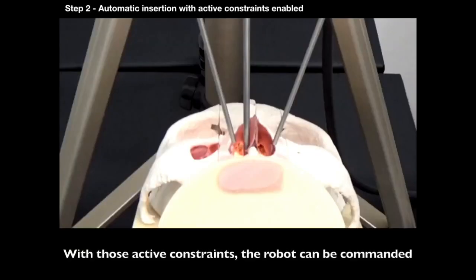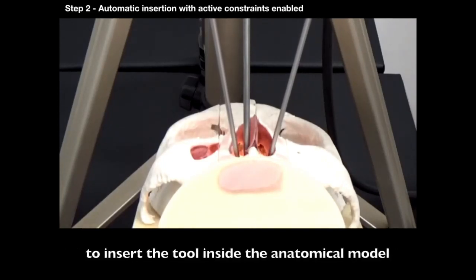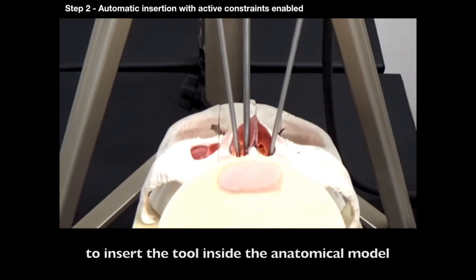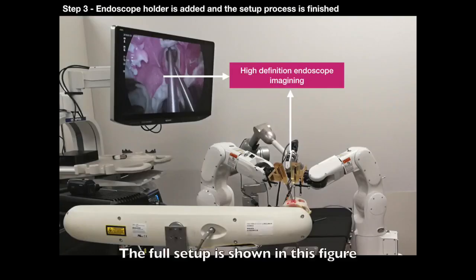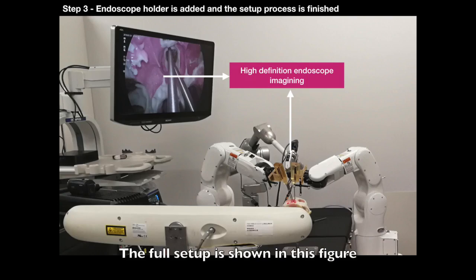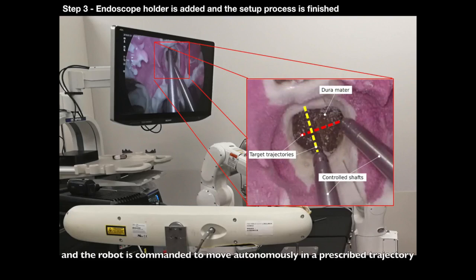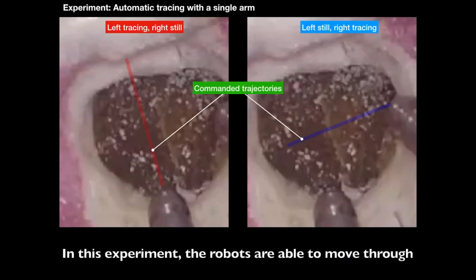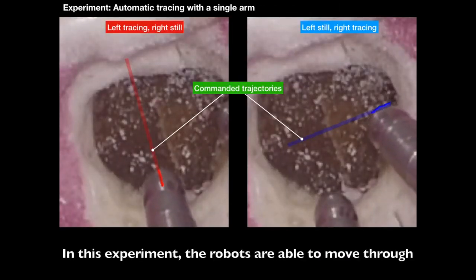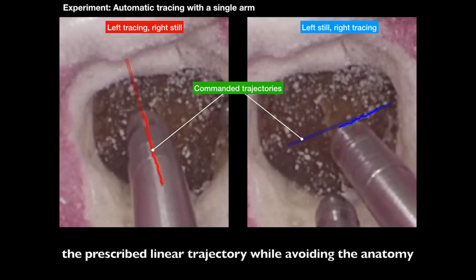Each tool has a finite cylinder constraint to avoid collisions. With those active constraints, the robot can be commanded to insert the tool inside the anatomical model. The full setup is shown in this figure, and the robot is commanded to move autonomously in a prescribed trajectory, tracing the membrane through the cut path used in real surgery. The robots are able to move through the prescribed linear trajectory while avoiding the anatomy.